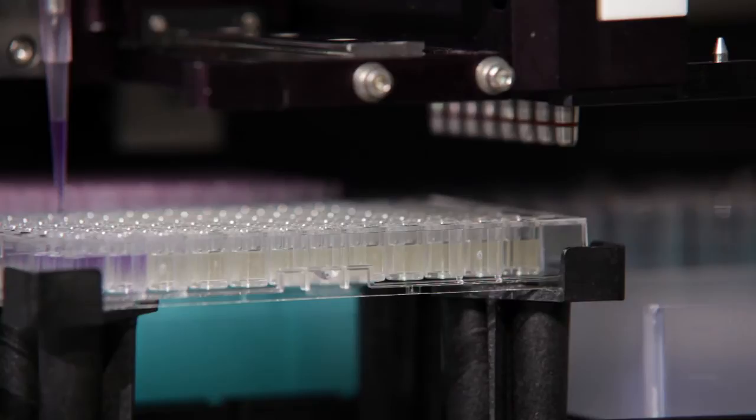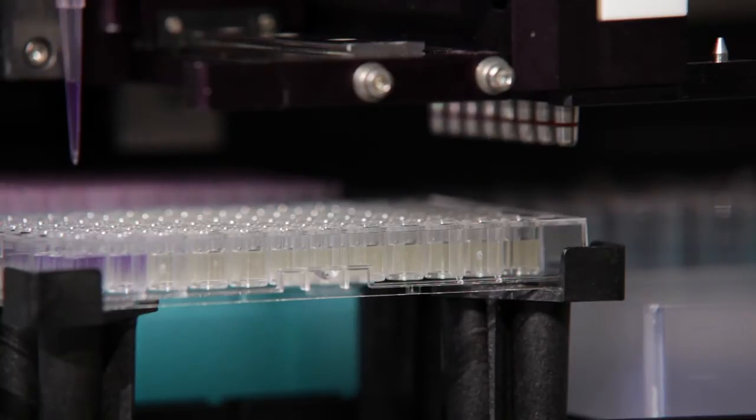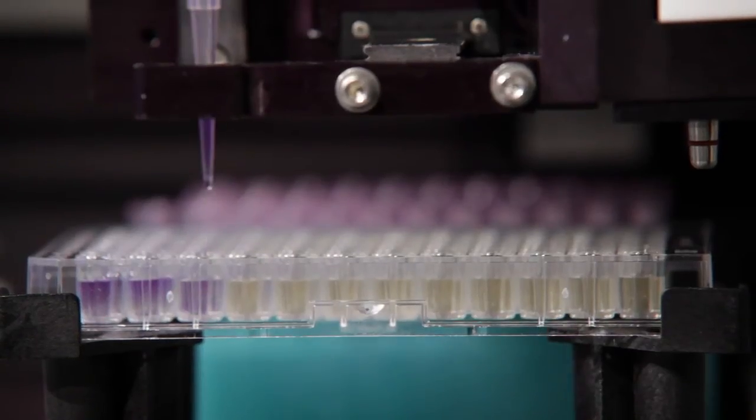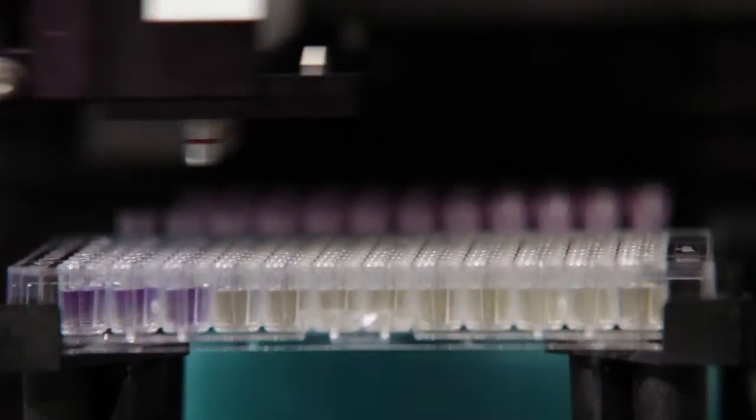Secondly, the Precision XS enables the inoculum preparation of the bacterial samples and finally inoculates the microplates.